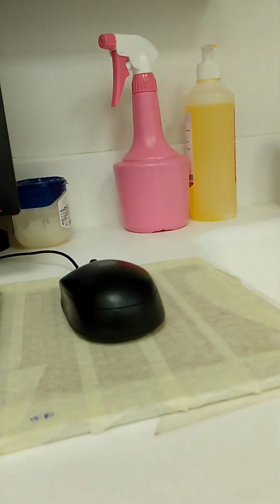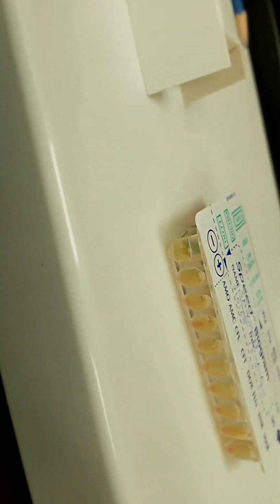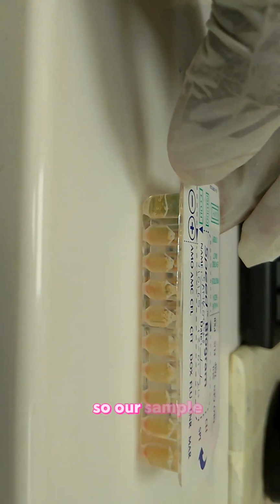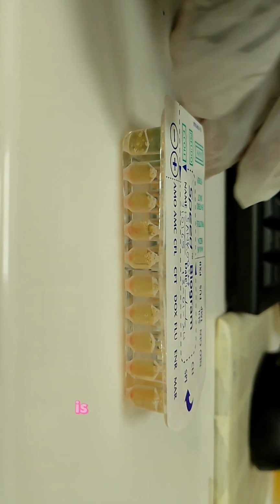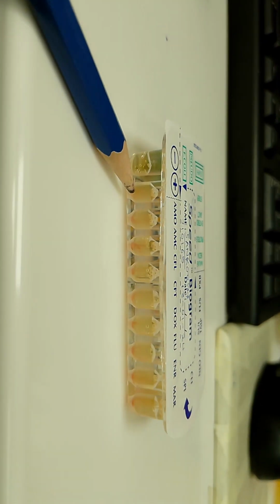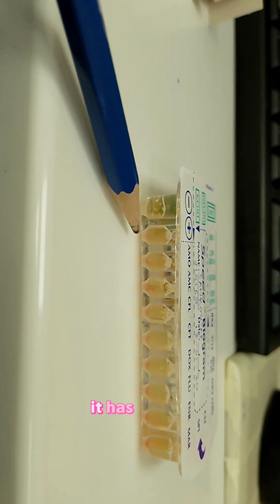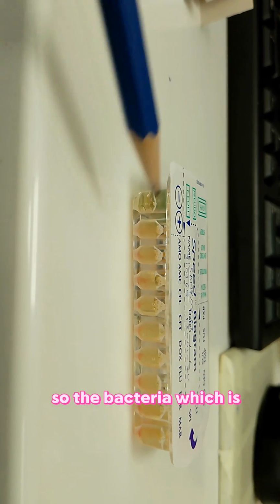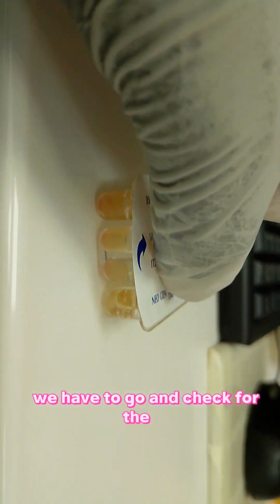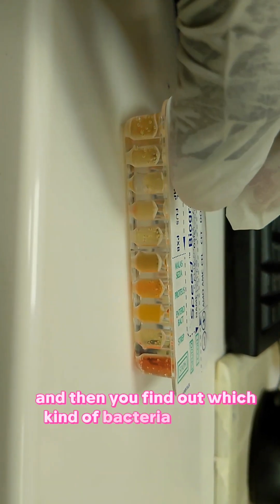Okay, I'll try to do it like this, maybe you can see very well. Okay, so our sample is already positive. This sample has bacteria. For the bacteria which is present, we have to check the side of the bacteria, and then we find out which kind of bacteria is present.